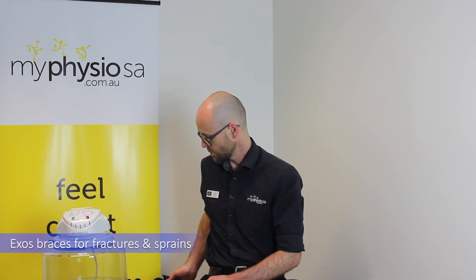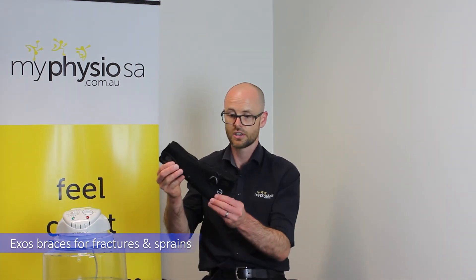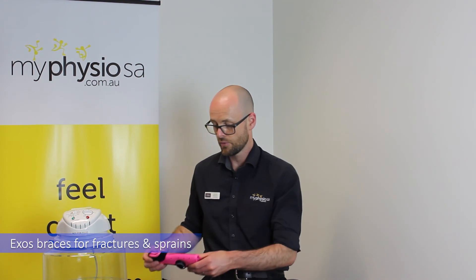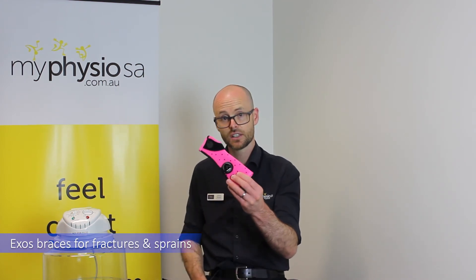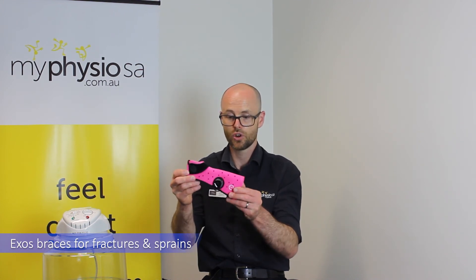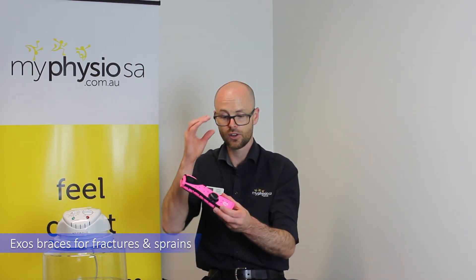There's a range of different ones for different conditions — this is a short arm fracture brace and this is a wrist brace. They're great for kids too, coming in different colours for paediatric or younger children, and there's a little locking system that means they can't take it off if they're not meant to without adult supervision.